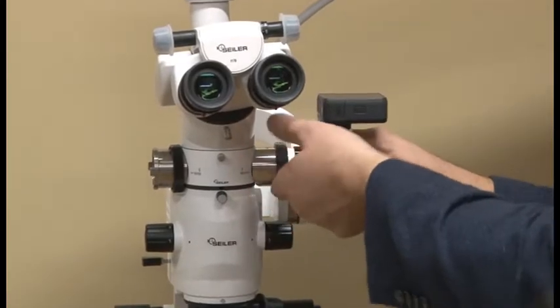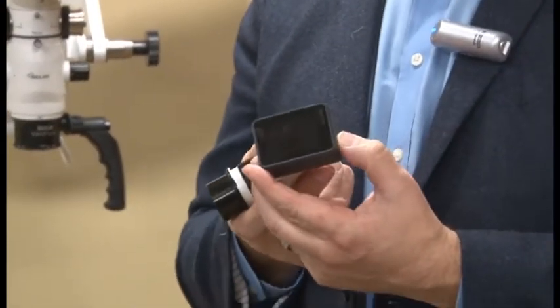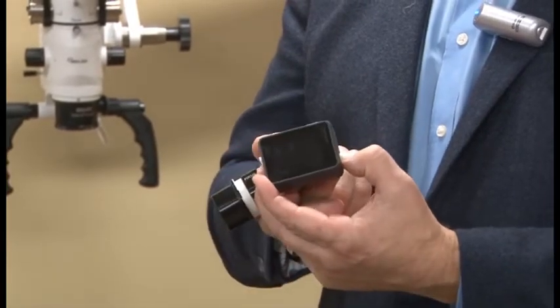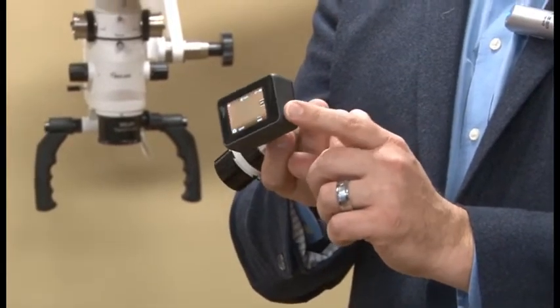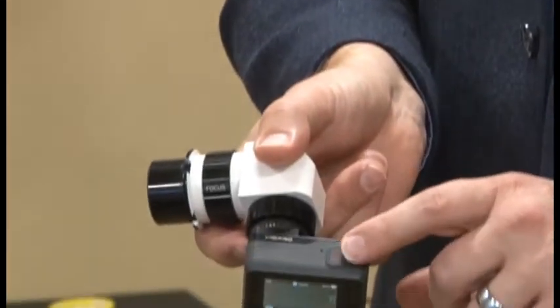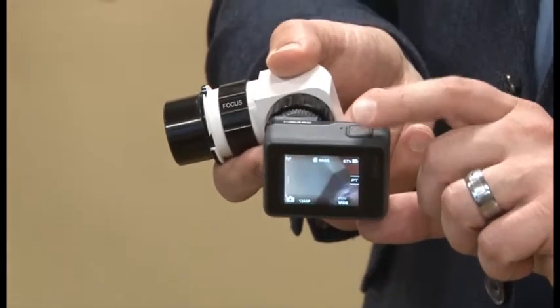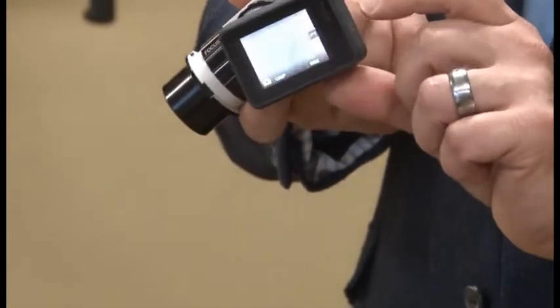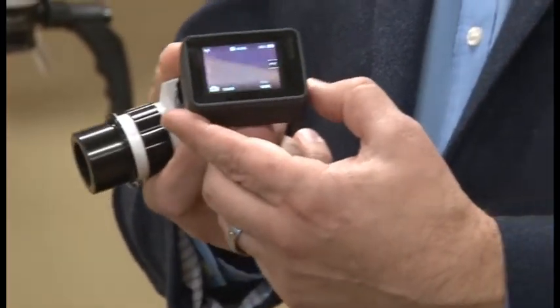What I want to make sure is a couple of points on actually manipulating the camera when we have it for doctor's use. Turning on the GoPro is from the mode button, which is on the side. Do not turn it on from this red button. The red button is only to be able to take single shot images, to record, and to stop recording. Your mode button is what is going to be turning the GoPro on and off.